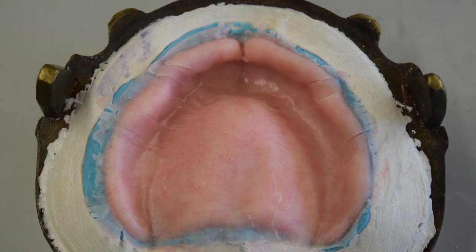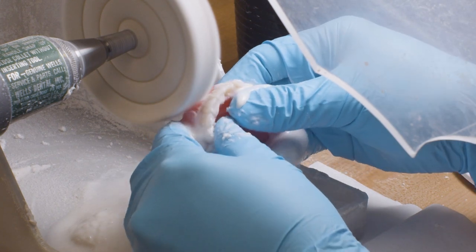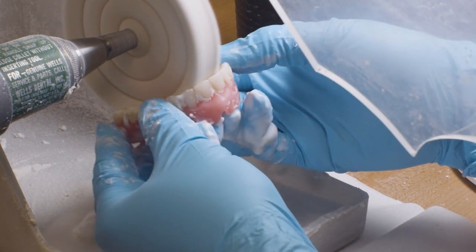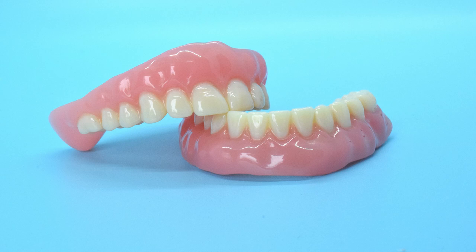Once cured, the denture is inspected for fit. Assuming it passes the quality check, the final prosthesis is polished and sent to your dentist.